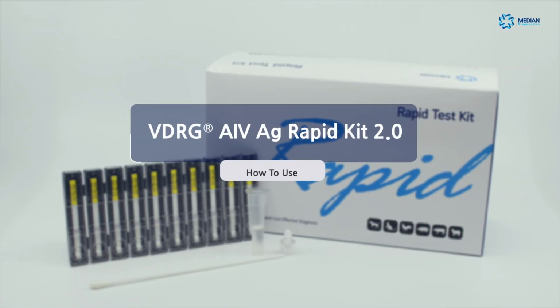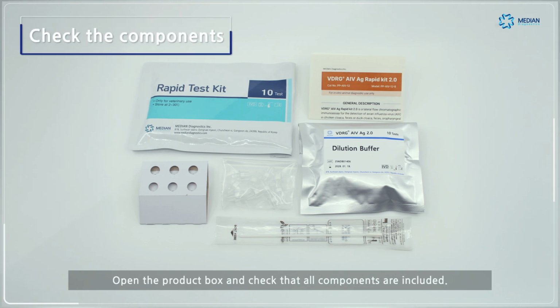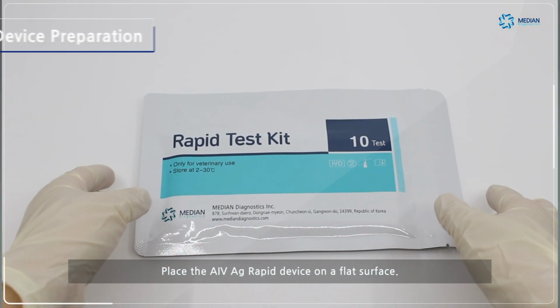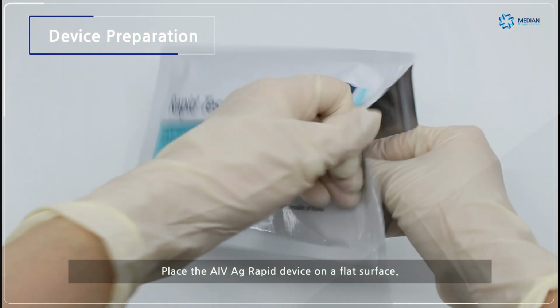Welcome! This video will guide you through the instructions for using the avian influenza virus antigen rapid kit. First, open the product box and check that all components are included. To start the test, place the avian influenza virus antigen rapid device on a flat surface.